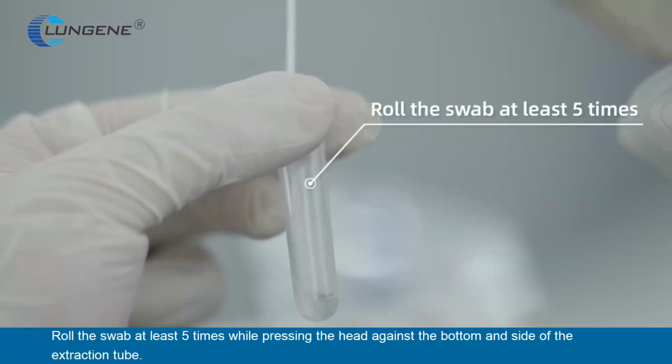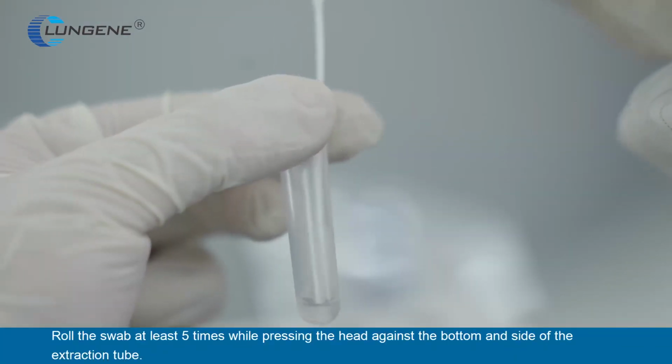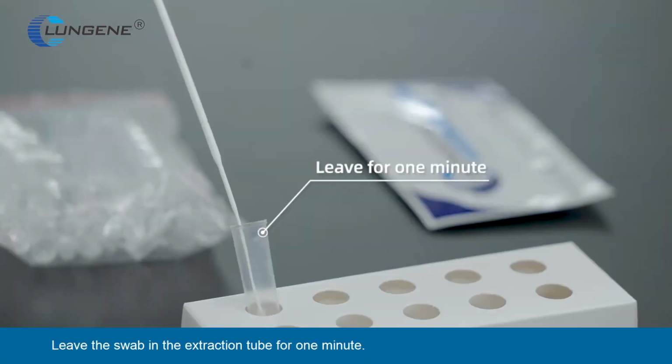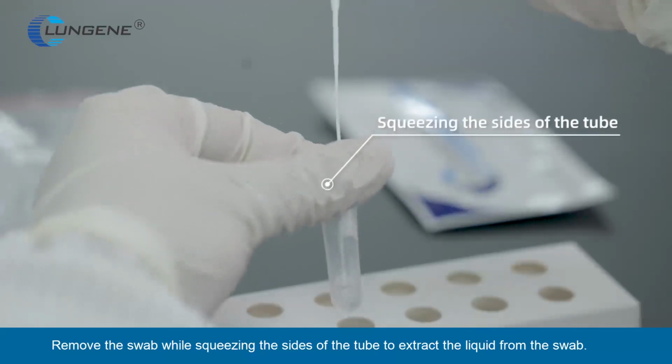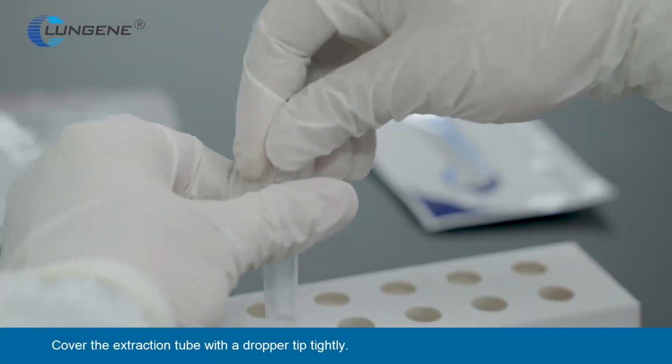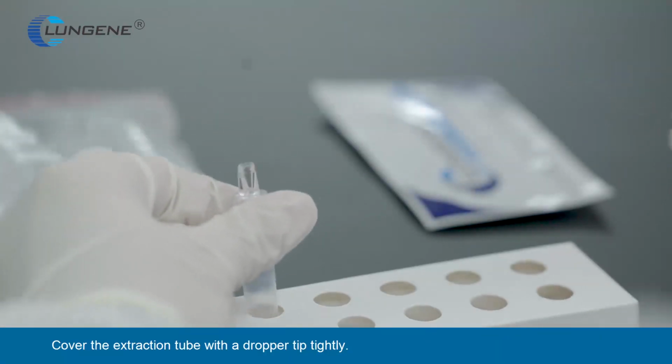Roll the swab at least 5 times while pressing the head against the bottom and side of the extraction tube. Leave the swab in the extraction tube for 1 minute. Remove the swab while squeezing the sides of the tube to extract the liquid from the swab. Cover the extraction tube with a dropper tip tightly.